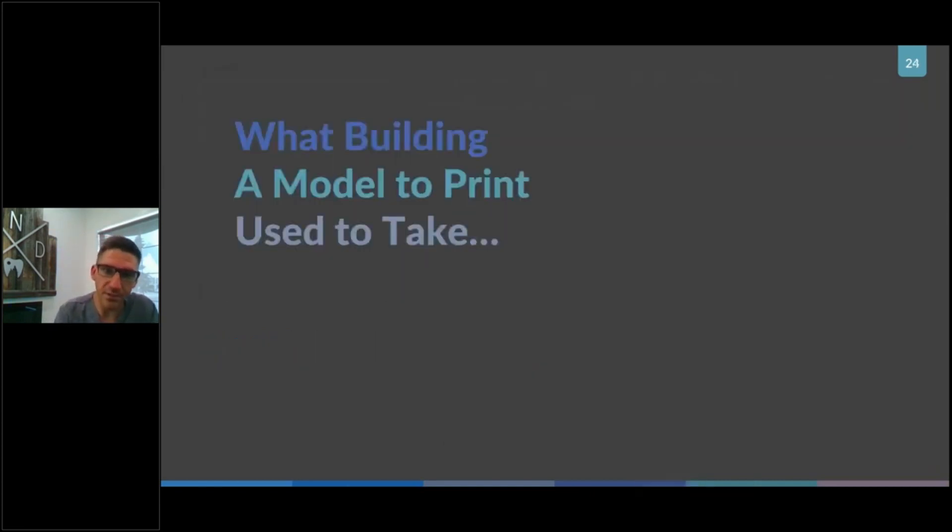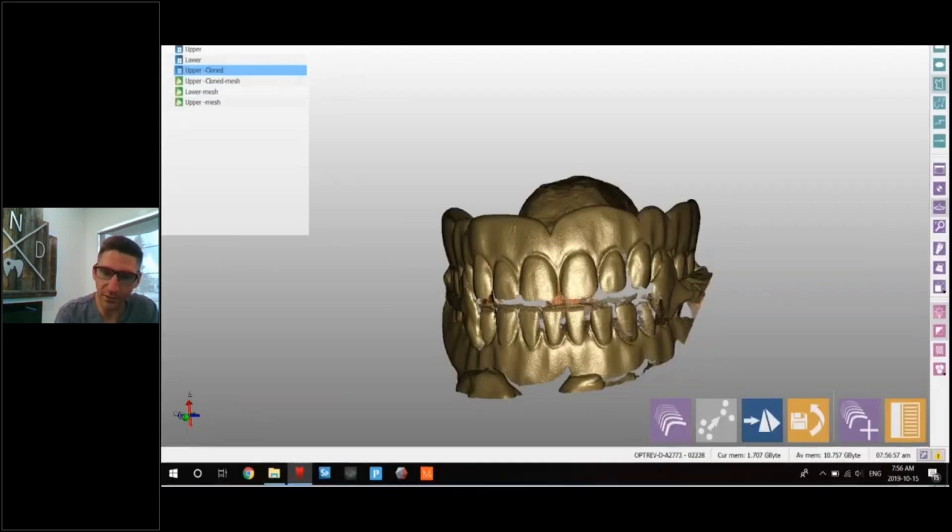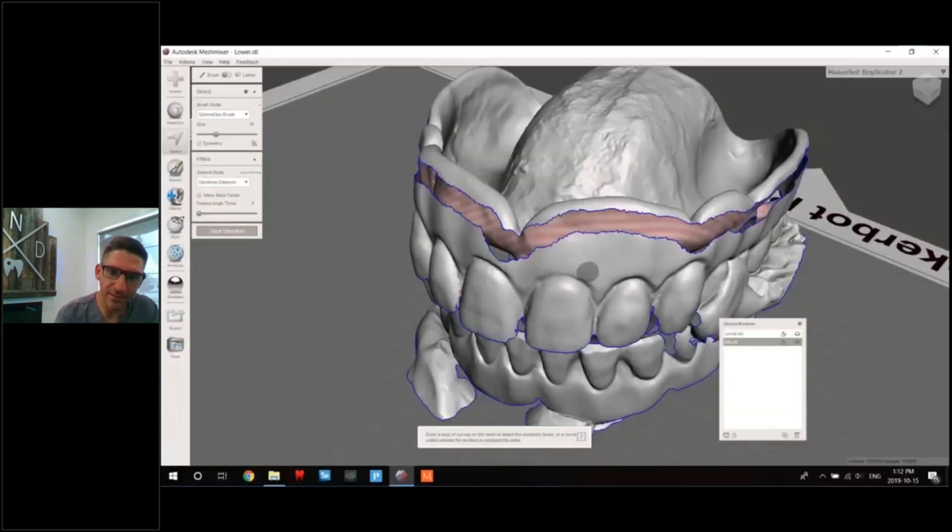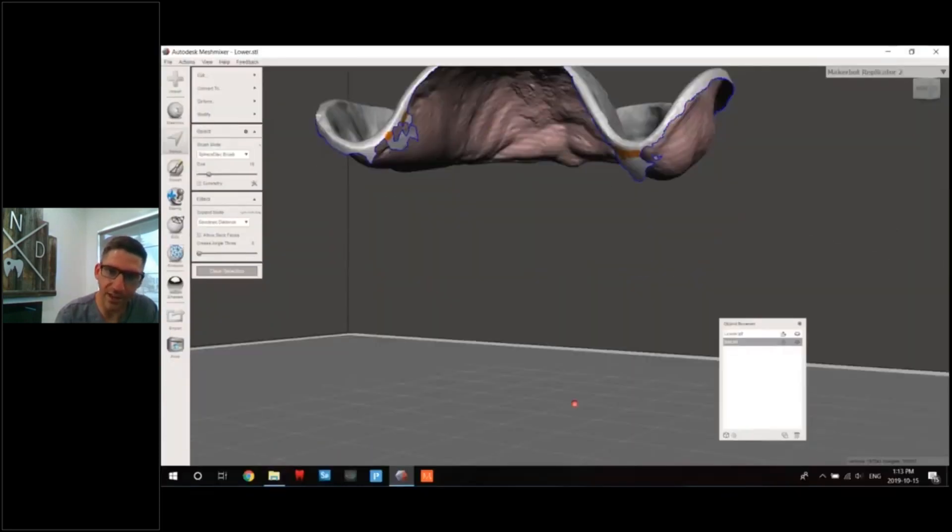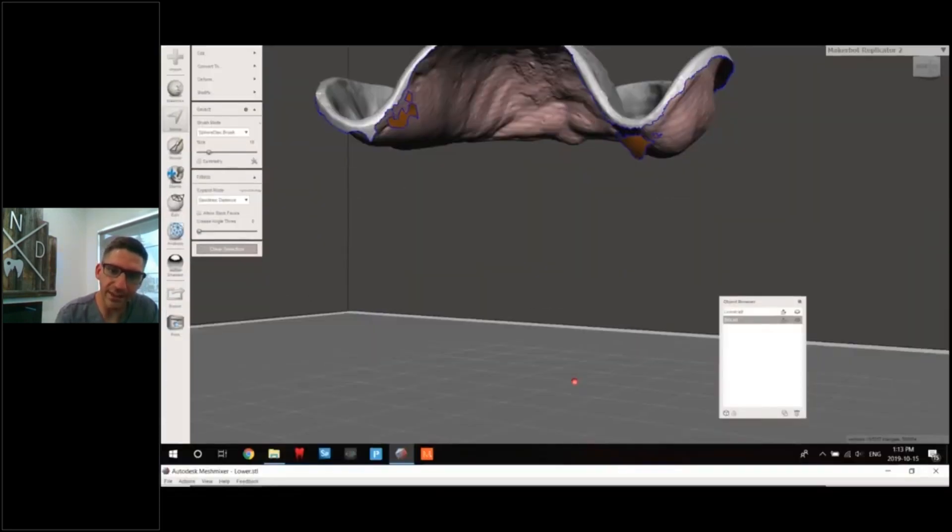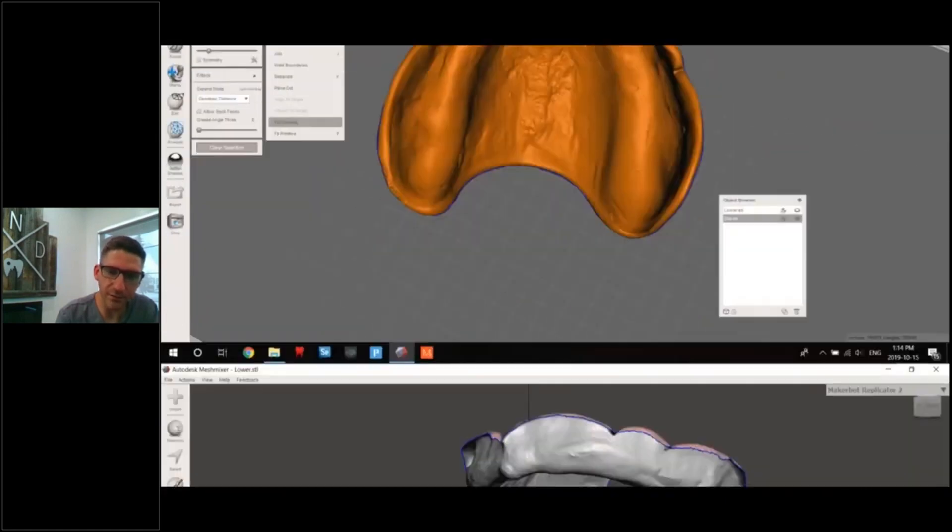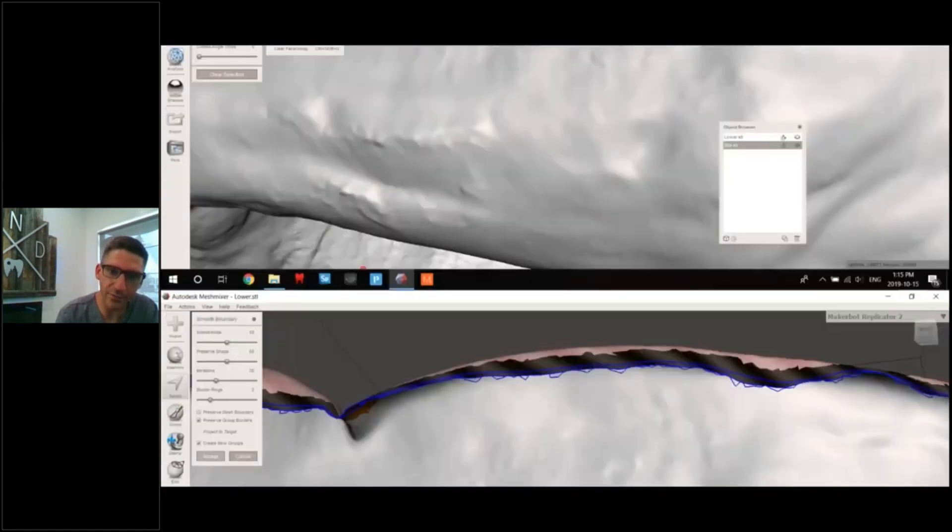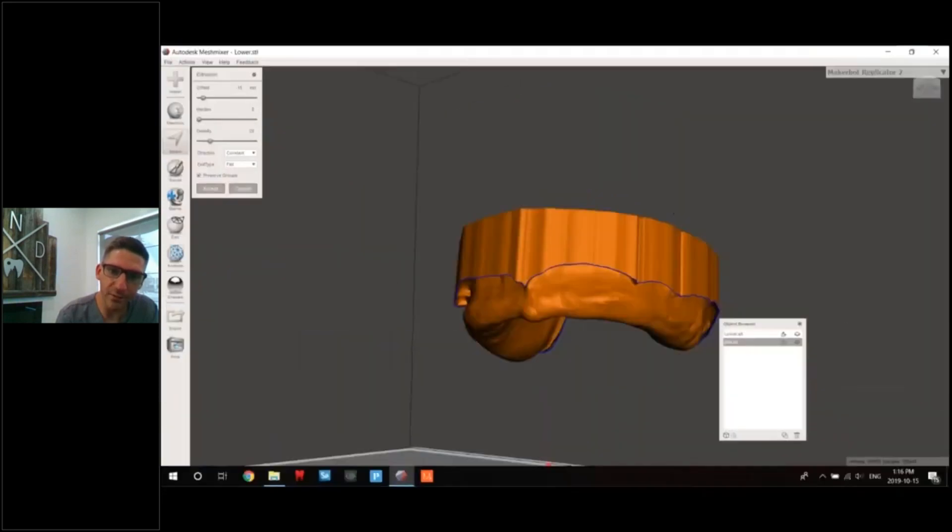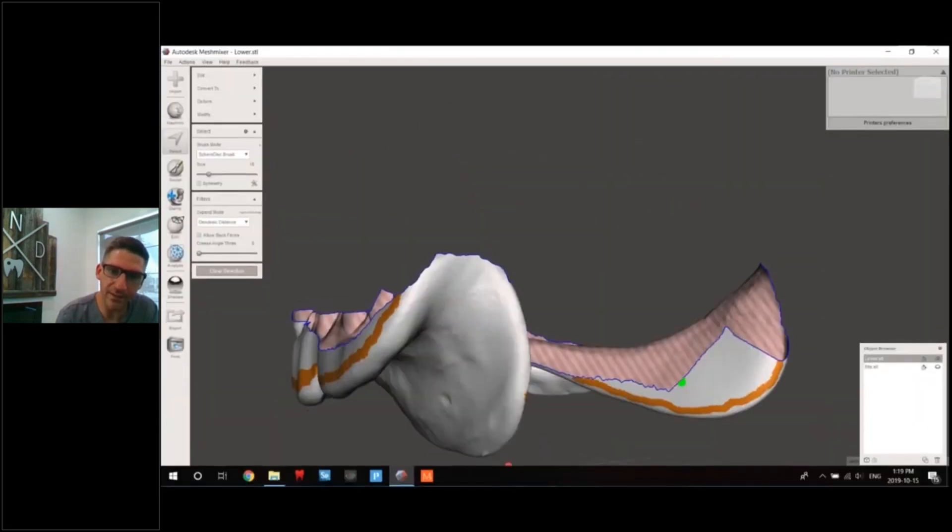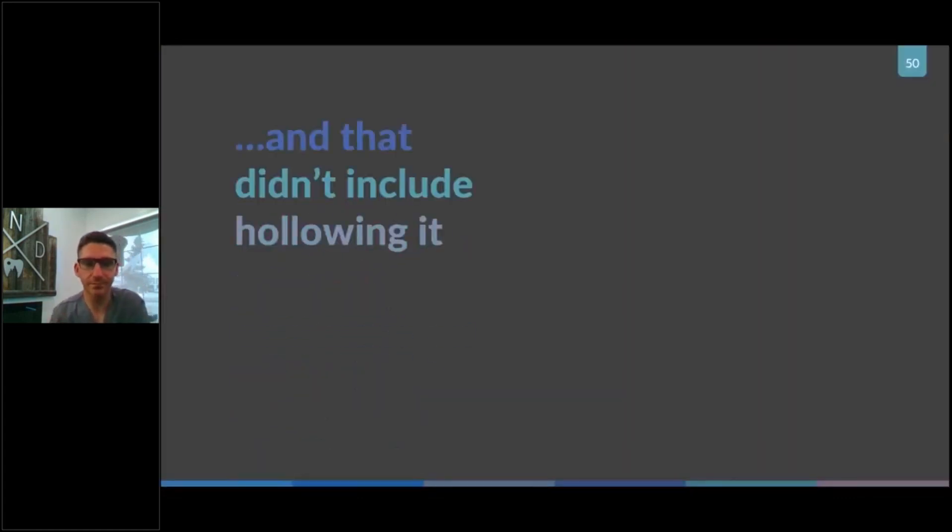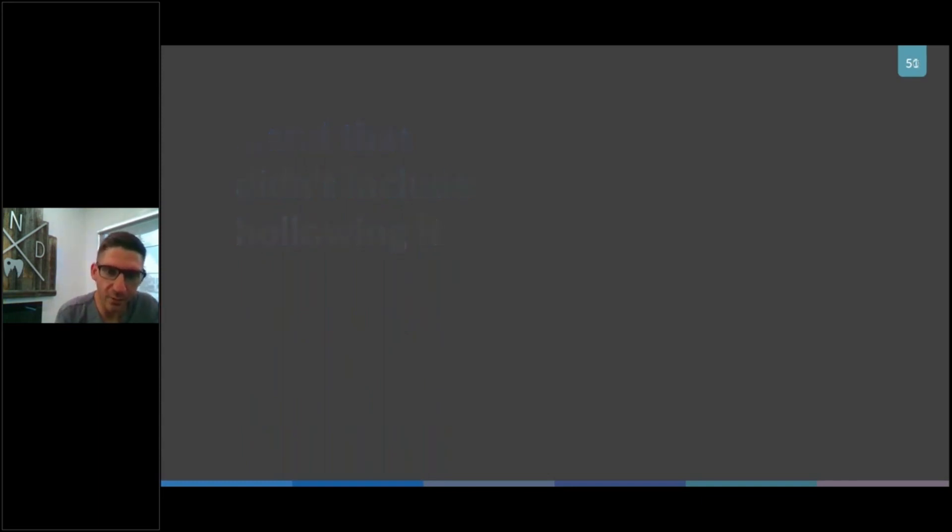So in the past, like I said, lovely old Mesh Mixer, this is how much work it used to take me to make a model. These were like upper and lower scans and it's just slide after slide. I think it's like 30-40 slides. We're going to fly right through these. We're flipping it inside out, we're refining our borders, now we have something, now we got a base. Do the same for the bottom. And that was without even hollowing it, that was a whole other probably 30 slides.